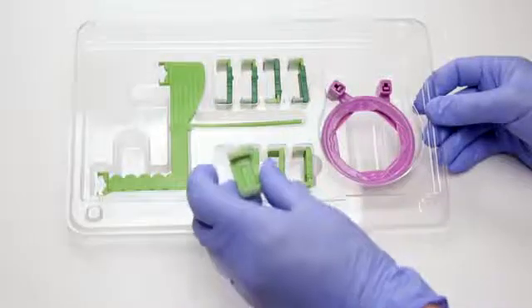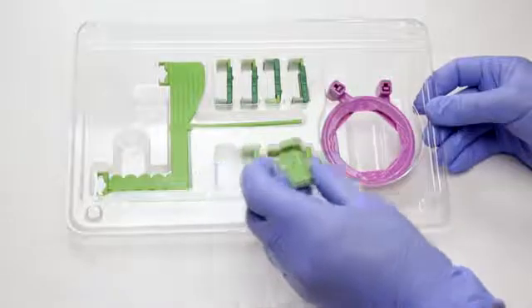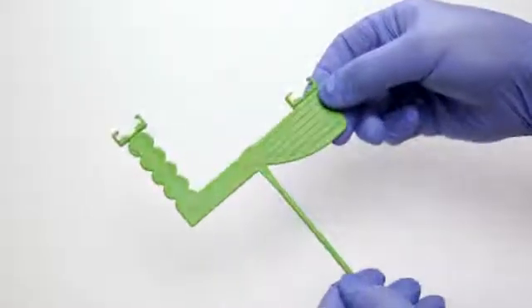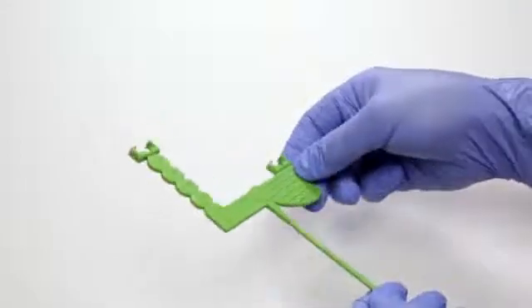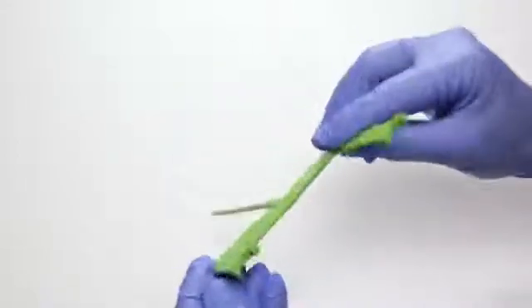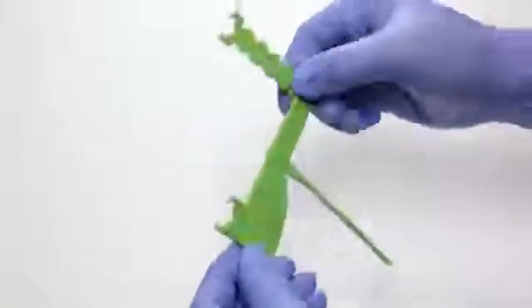After selecting the proper size sensor holder, you'll snap it into place in the Universal positioner. The positioner has two sensor holders. One, the thin part, is for anterior x-rays. The other, with the wide, flat bite area, is for both posteriors and bite wings.